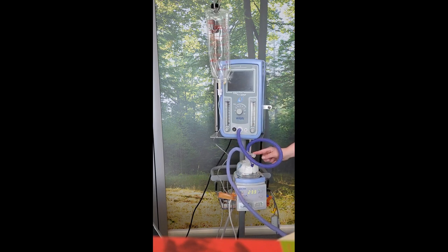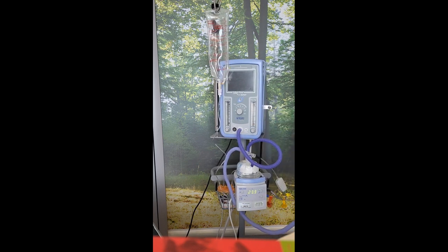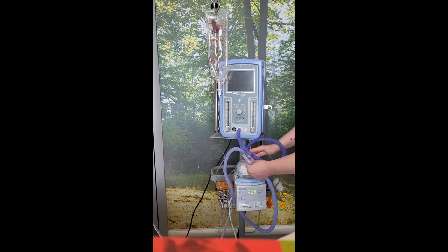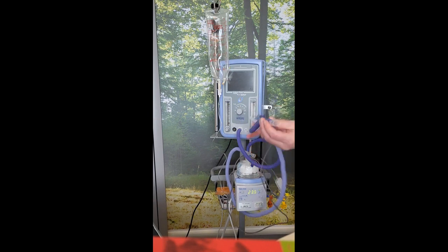Here you'll see two ports. There's the heater port in which you'll see a flower-like three-piece prong that attaches into the end. There's also a long grey piece of tubing which is your temperature monitor. The piece in the middle of the tube has a triangular section which slots into the chamber — it only fits in one way. Then the blue spike at the end of the wire fits into the end of this tube: pull the plug out and pop that in. Then select your remaining piece of dark blue tubing and attach it to the end of the light blue tubing.